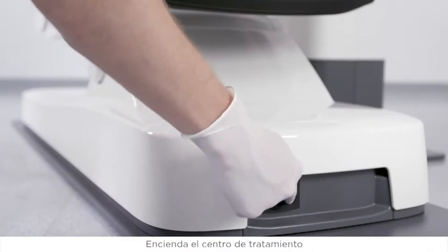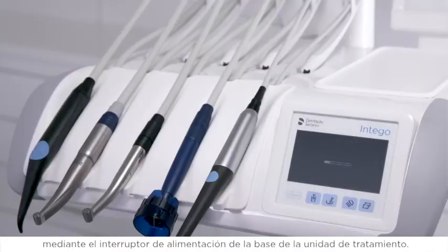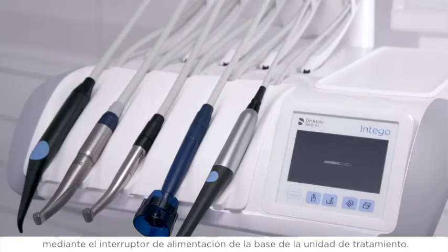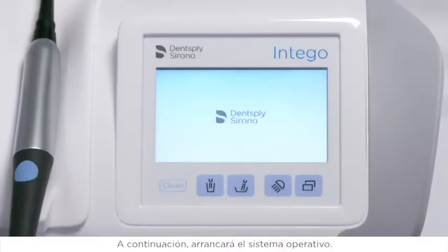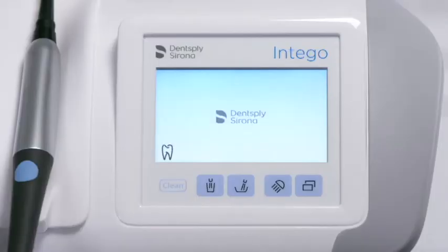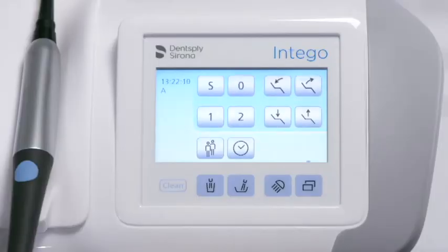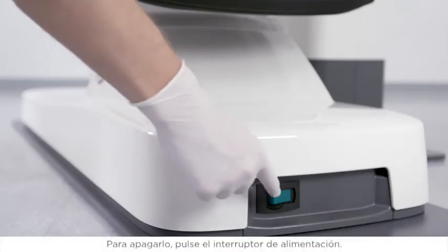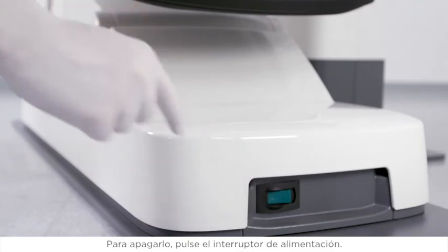Switch the treatment center on using the power switch at the foot of the treatment center. The operating system boots up. To shut it down, switch the power switch off.